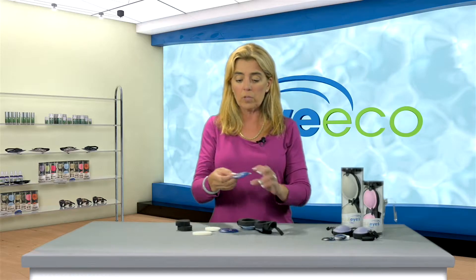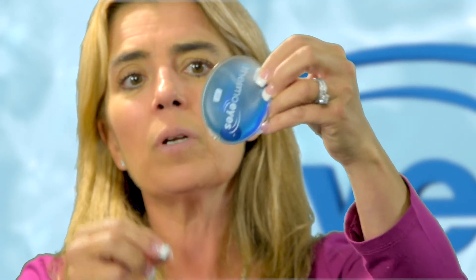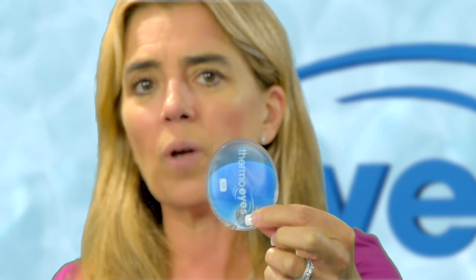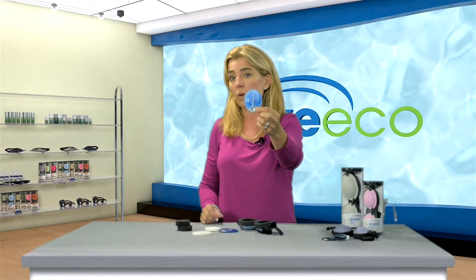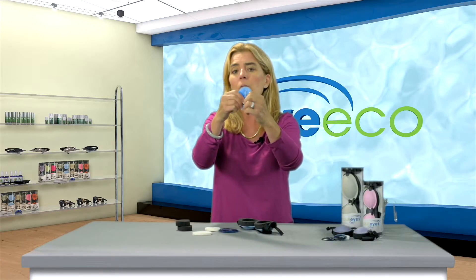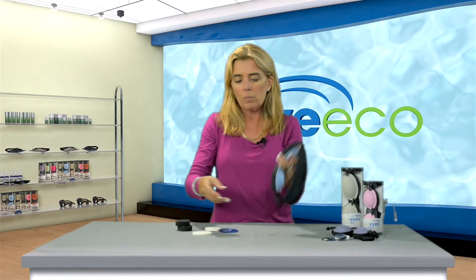Here's one of our technologies — we call it the instant. There's a little stainless steel disc in there, you can see it floating around. The fluid inside is sodium acetate, a non-toxic food-grade salt water. When you click this little disc back and forth — you probably heard that — you can see it crystallizes. That crystallization process generates heat, and it's very controlled heat. It'll never exceed 112 degrees Fahrenheit, so you can't burn your eyelid. Once it's activated, you want to tuck it into the back of the goggle, like so.